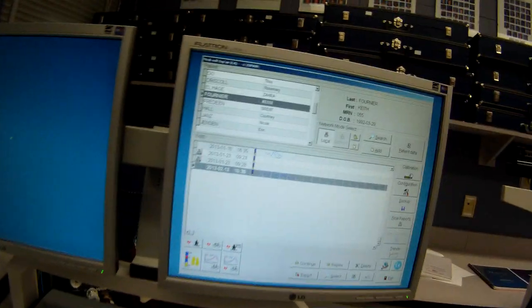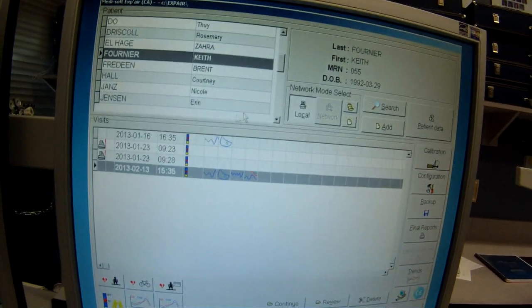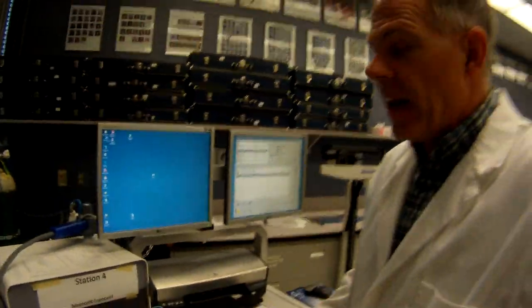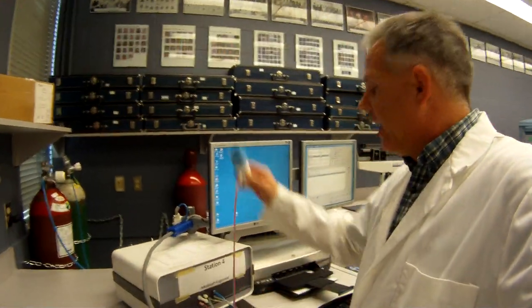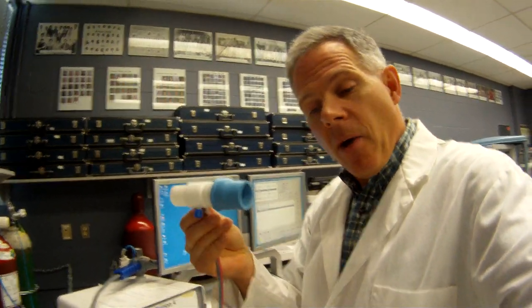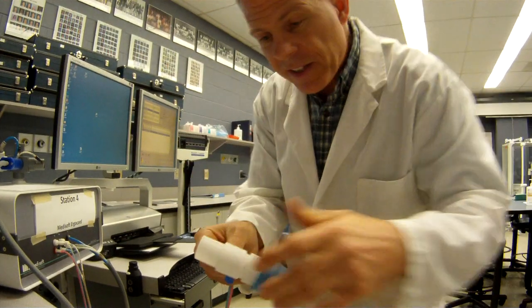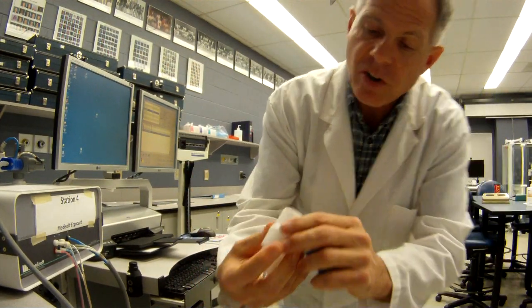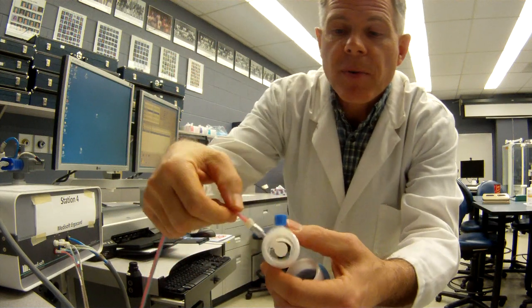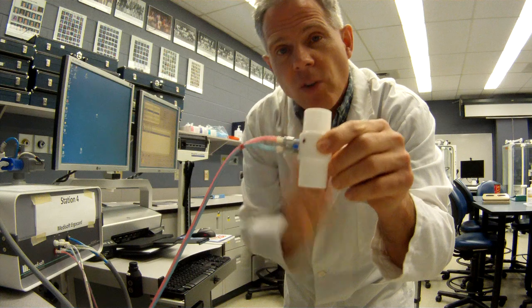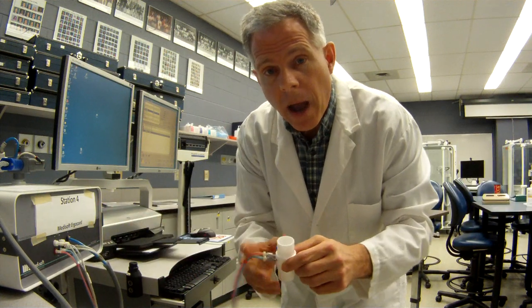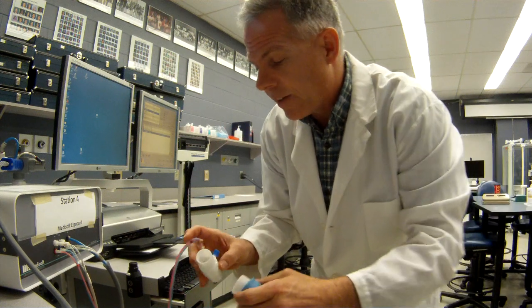So I'm going to start a basic calibration in just a second here. Now the heart of the ErgoCard is the spirometer and that's this pneumotac right here. Now the way this works is that we have a known resistance inside the unit like this. And we're going to measure the pressure drop across that known resistance. That pressure drop is measured inside very accurate pressure transducers right here within the unit.